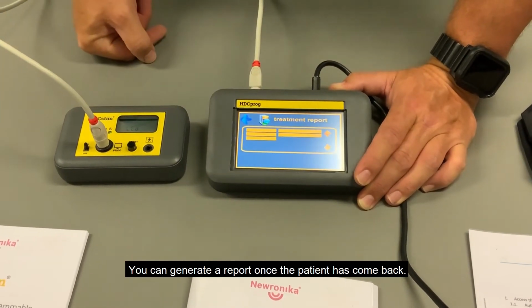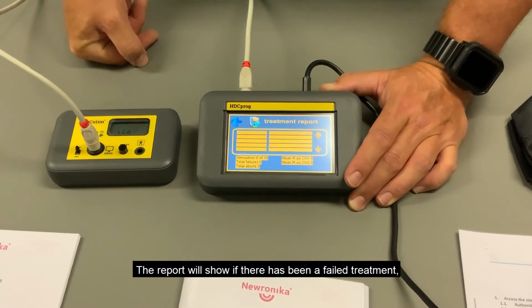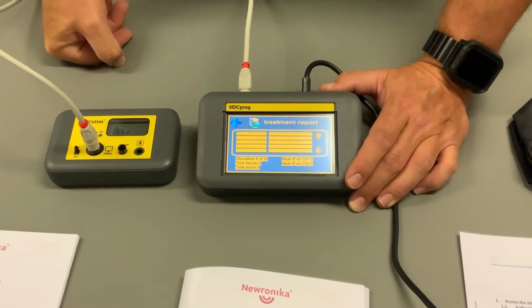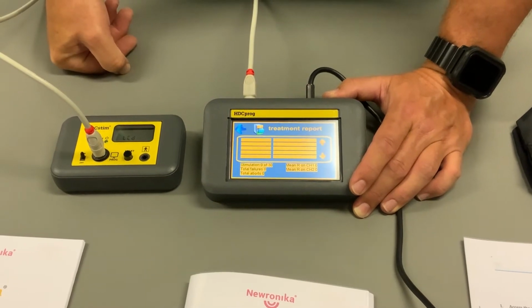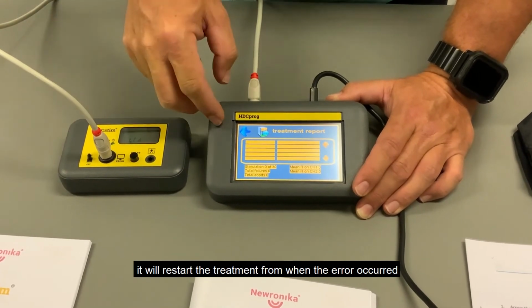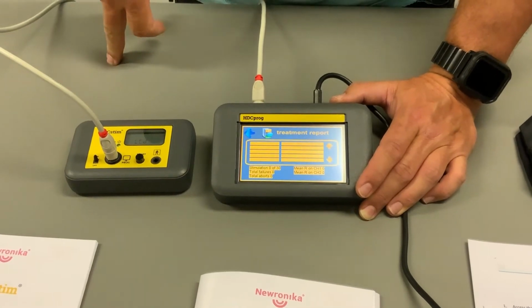You can generate a report once the patient has come back. The report will show if there has been a failed treatment, or if an electrode has been placed incorrectly on the patient's head, or if there was a bad connection. All of the mentioned faults will be shown in the generated report. If a treatment has been stopped because of an electrode not being held in place, or if there is a break in the cable, it will restart the treatment from when the error occurred, once the issue is rectified.